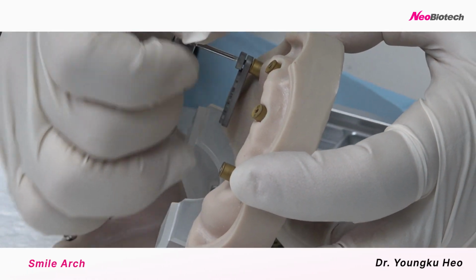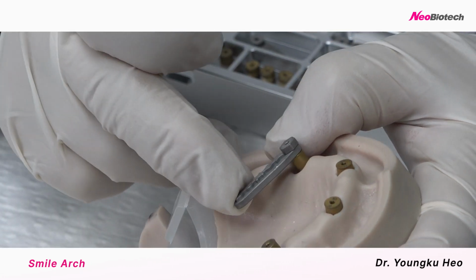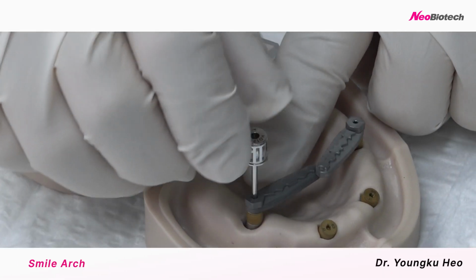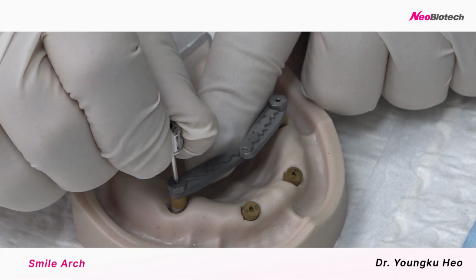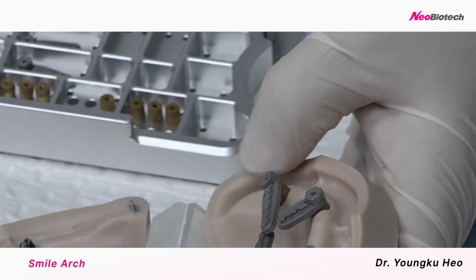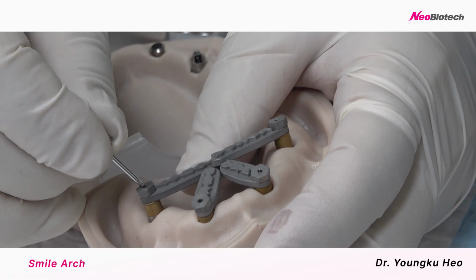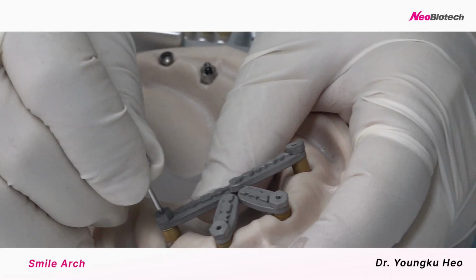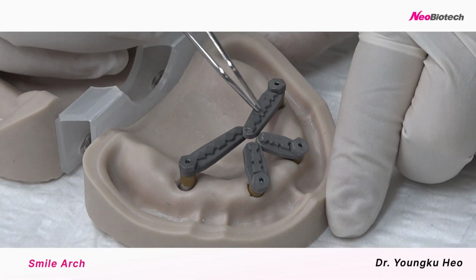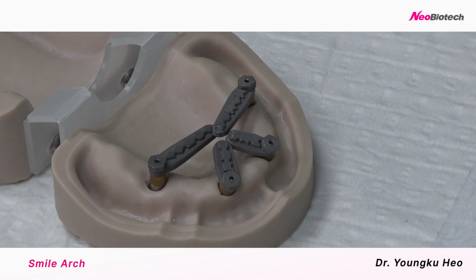All right, posterior first. I can move up here. Okay, you don't have to tighten too much, just a little bit. All right, and another short one, for very accurate scanning. So we had better keep them close together, so that we scan these things in one shot.